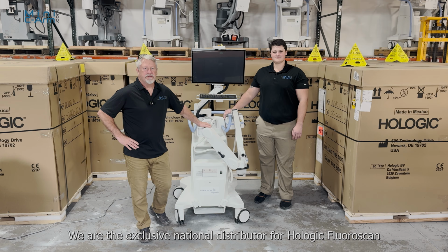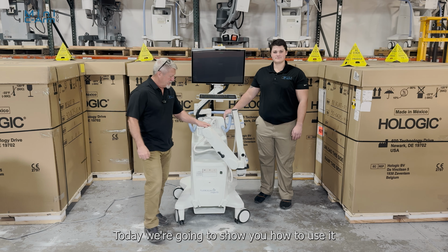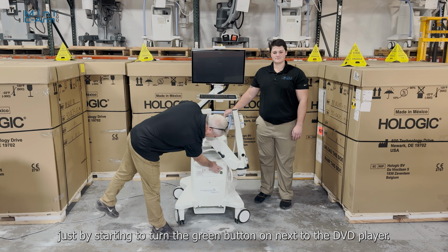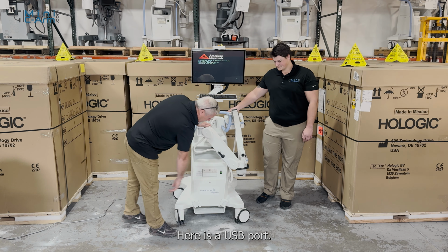We are the exclusive national distributor for Hologic Fluoroscan InSight FDs. Today we're going to show you how to use it. Just by starting to turn the green button on, it's next to the DVD player. Here is a USB port.